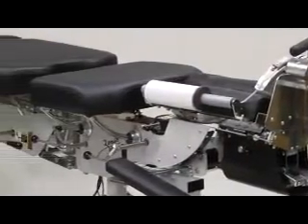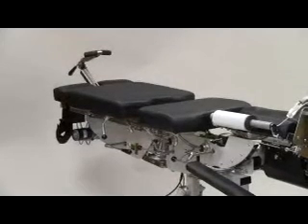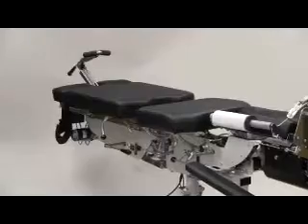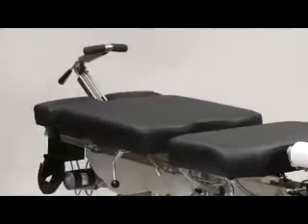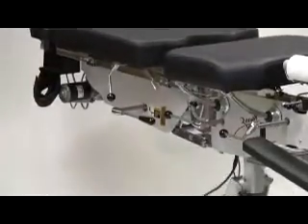The tilting headpiece also includes a face paper toweling dispenser. The thoracic cushion is available with the optional pivotal thoracic rotation. The caudal flexion distraction section includes a power balance leaf spring design and a tension indicator. This system preloads the spring tension for the caudal section. It includes a remote foot switch for operating the table from either side and a caudal assist handle.